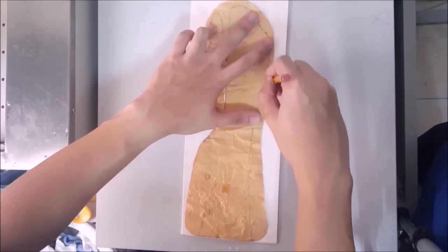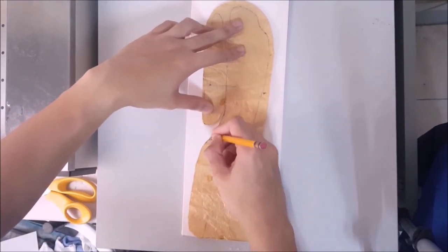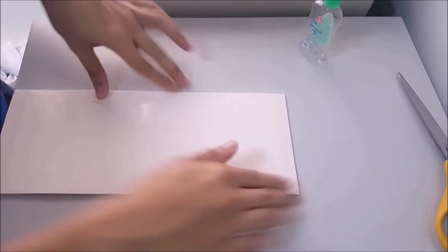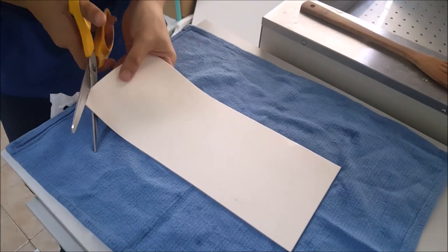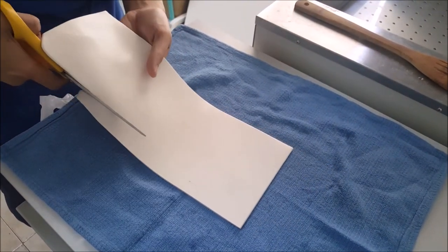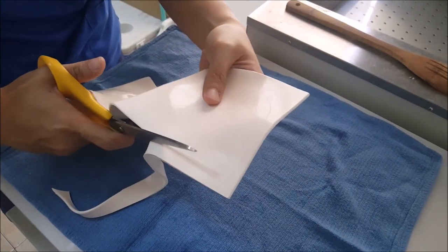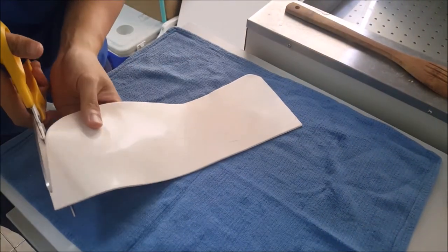With a pencil, trace the pattern on the sheet of thermoplastic material. Now put some oil on the thermoplastic to avoid damage while submerging this in hot water. Thermoplastic cutting: Heat the thermoplastic and cut the pattern out. Make sure that the edges are smooth and free of dirt or pencil marks. Please refer to the manual to check other options of cutting the thermoplastic.